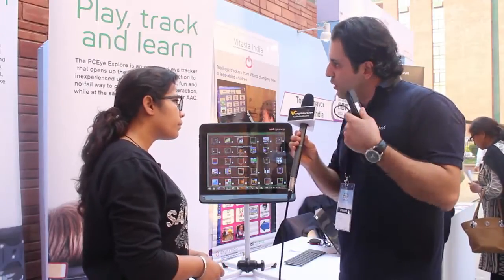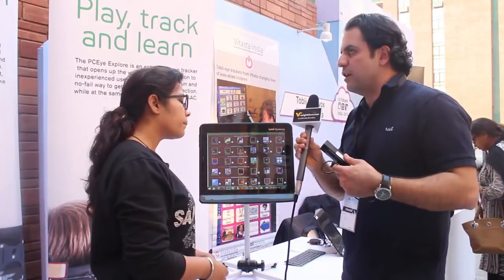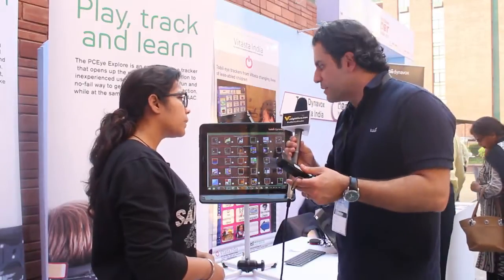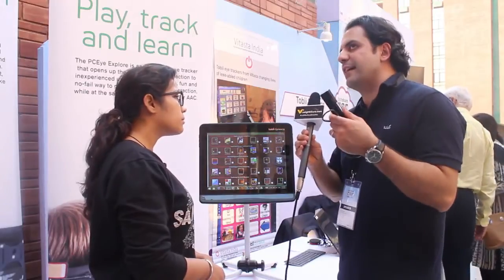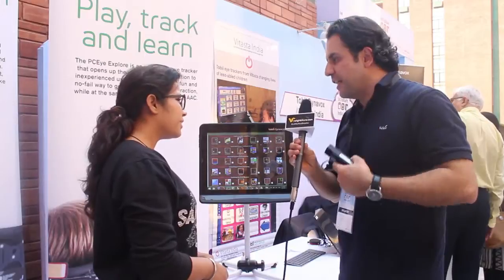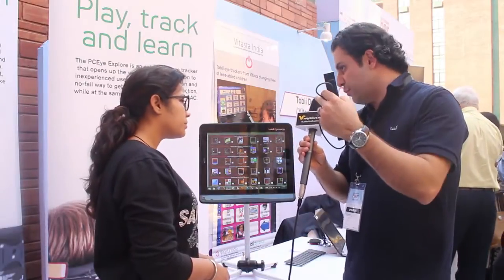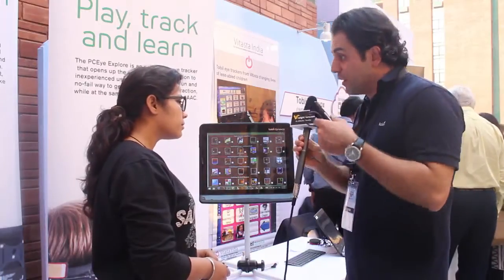Of course, if there's a cognitive disability as well, we have to practice. There's a learning curve that needs to be in place before the user can actually understand that if I look at something, I can make the computer say something for me. This is a barrier we have to pass, but we have software specifically made to overcome this.